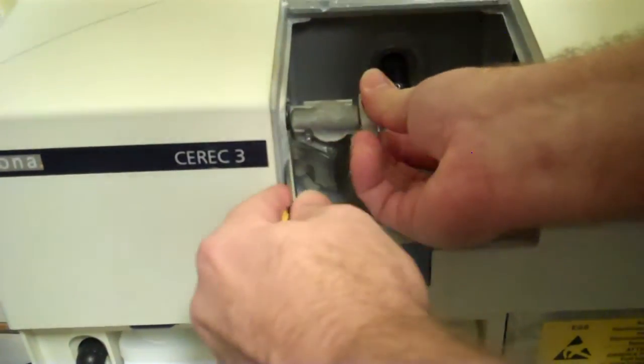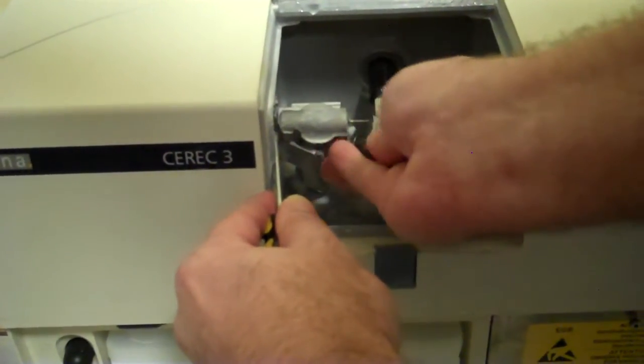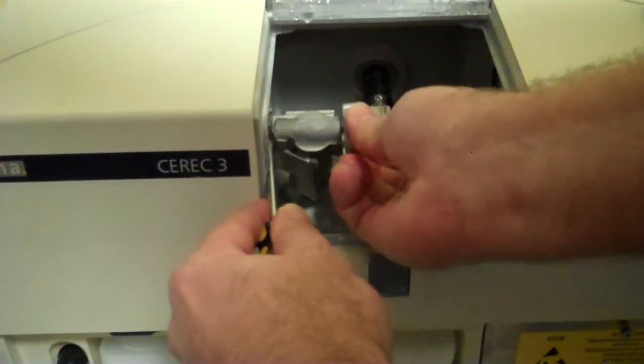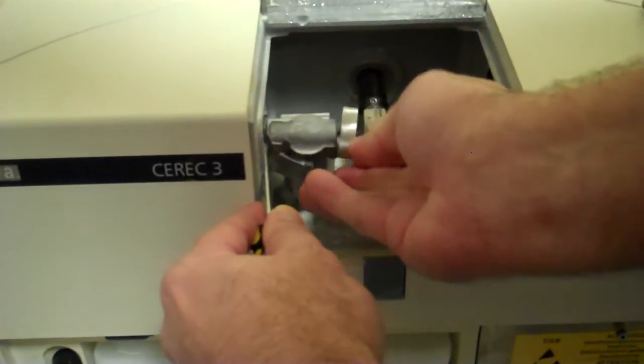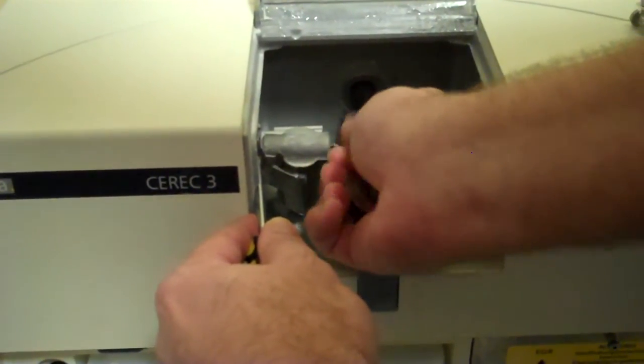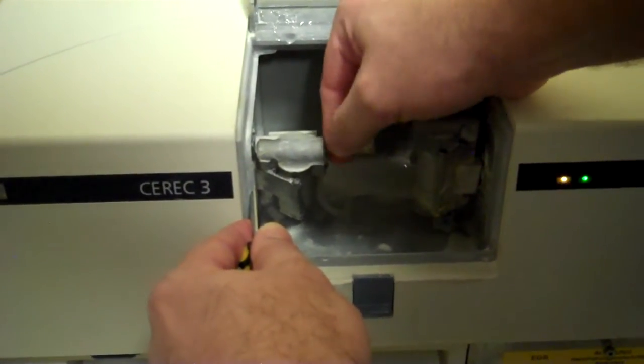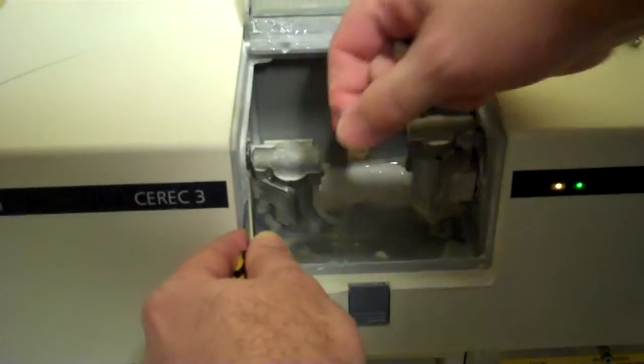And from that stage, you just unscrew it, and you screw it all the way out. The button has to remain engaged, if not the motor will spin.